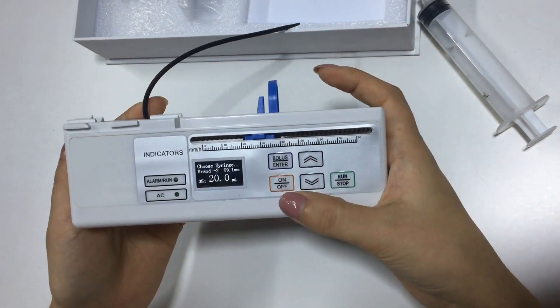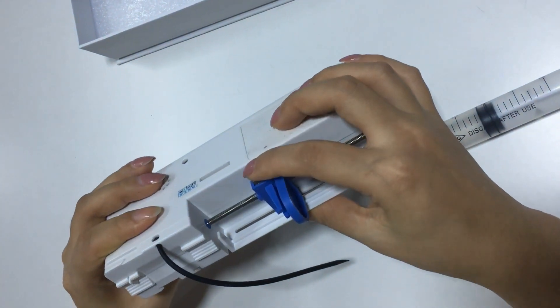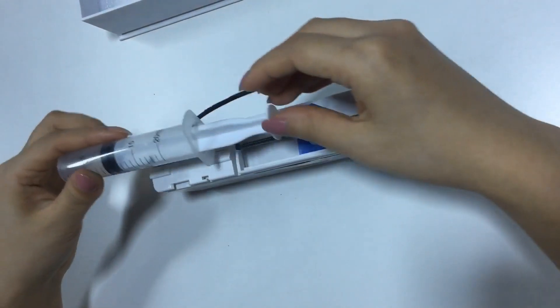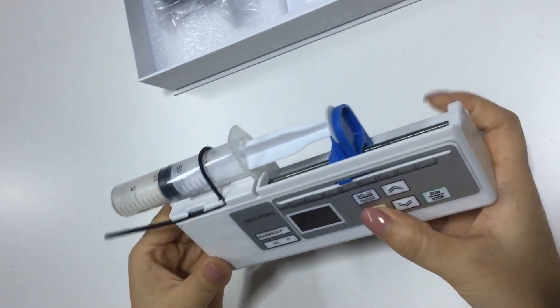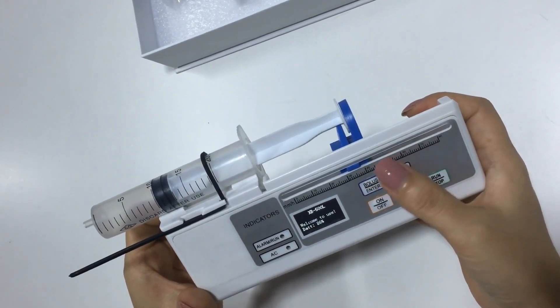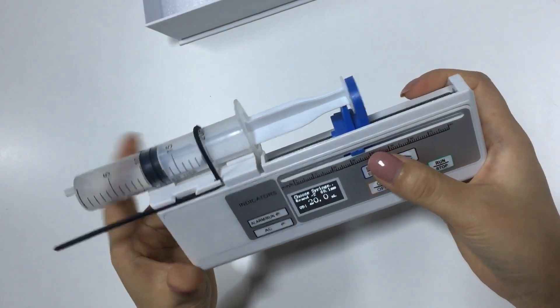Then you can turn off the machine, install the syringe here, and press the button to move it. Turn on the pump. Click Enter to send the parameters. This is the 20ml syringe that we just calibrated.